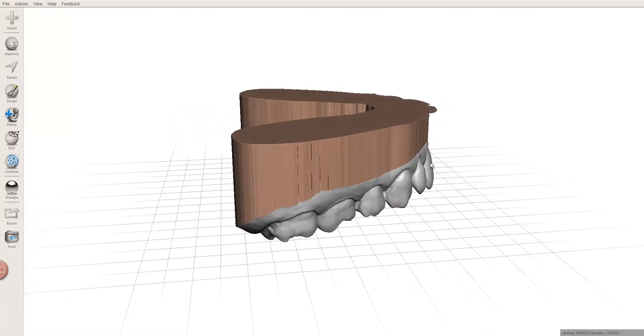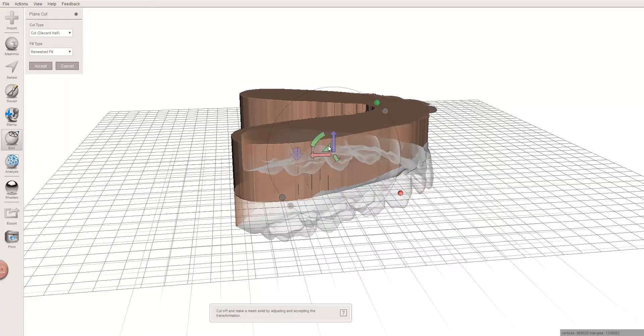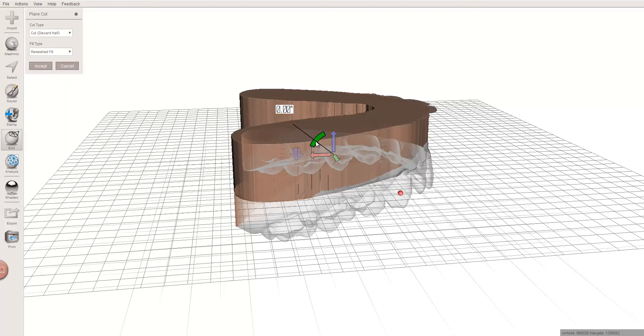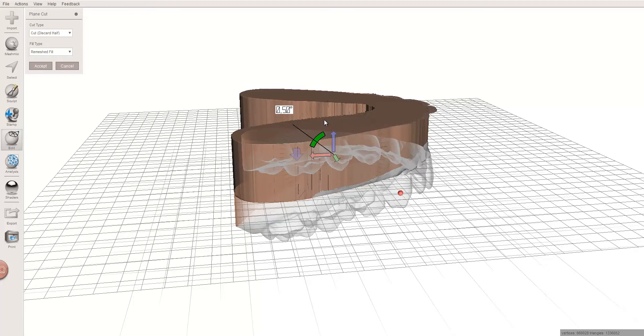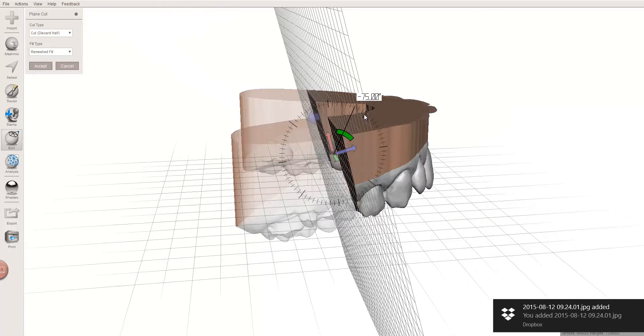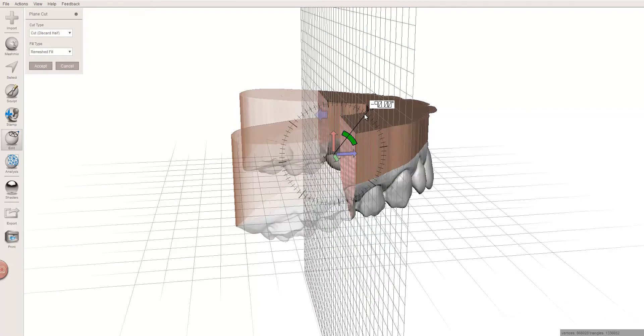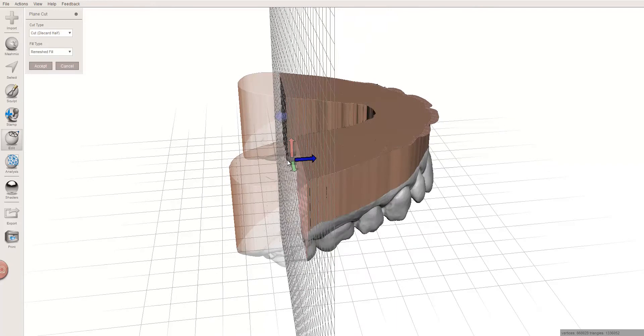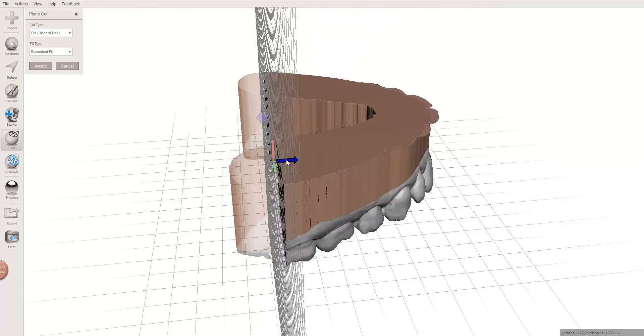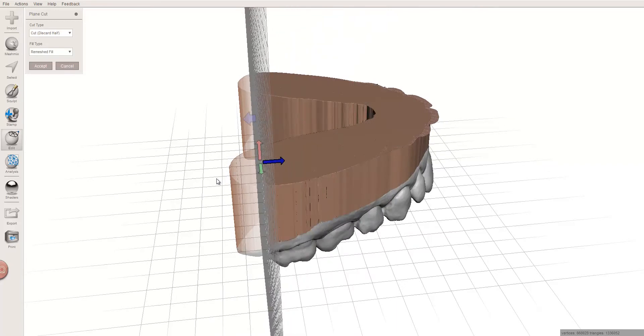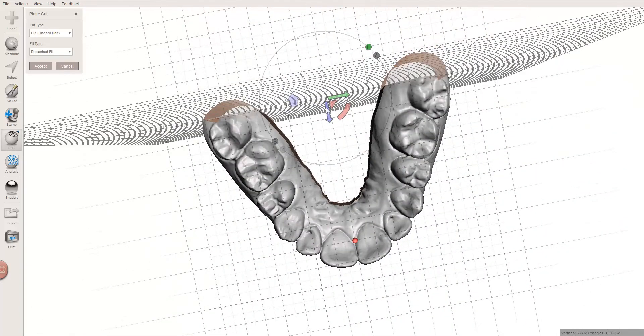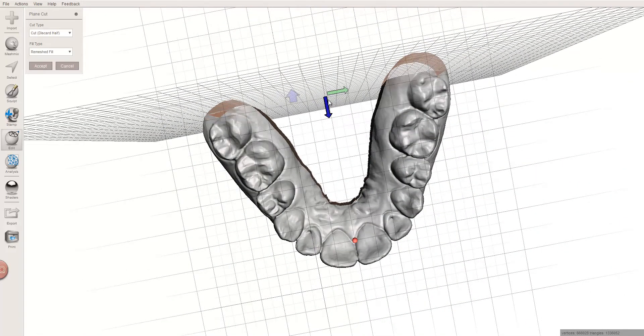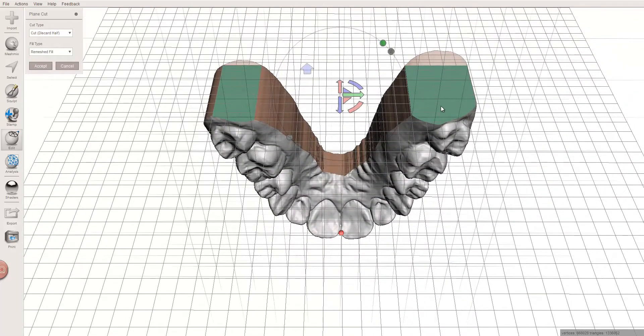I'm going to show you what it is that we're doing here. I'm going to go to plane cut, and here's where we get into an issue. First thing I'm going to do is grab this little bar here, and it allows me to change the angle. If I come up to the actual hash marks up here, I can determine the specific degrees by clicking the five degree increments. So I'm at 90 degrees right here. If I scroll back to the distal end, when we get sort of off the second molar, which is about where we'd want to do a plane cut, let's take a look at the heels of these. You can see they're big solid surfaces, and that's what we need.